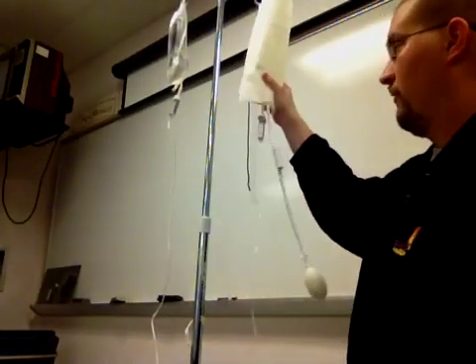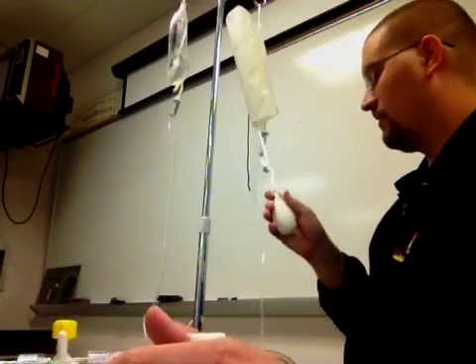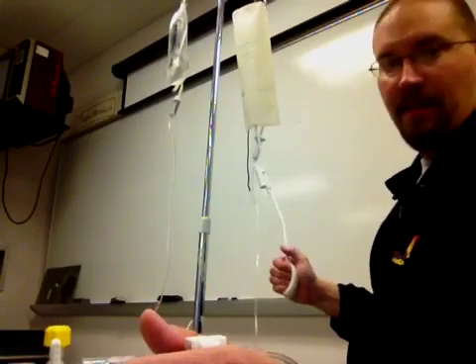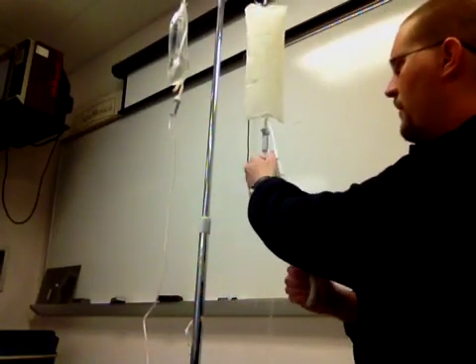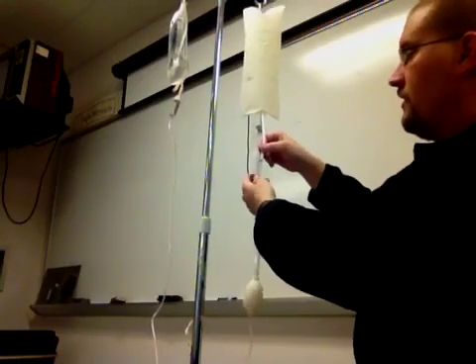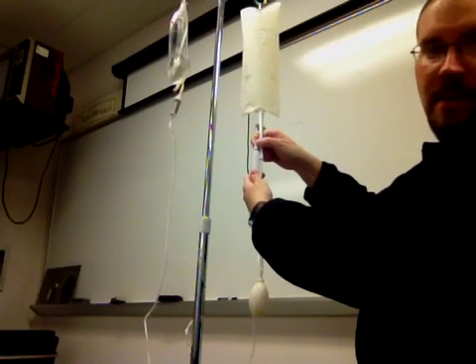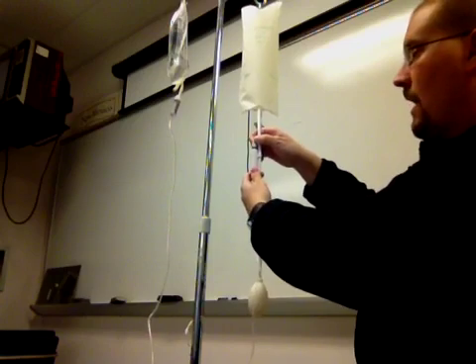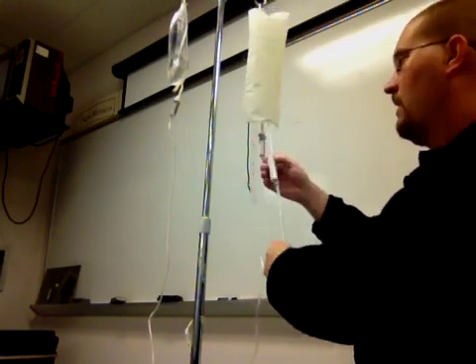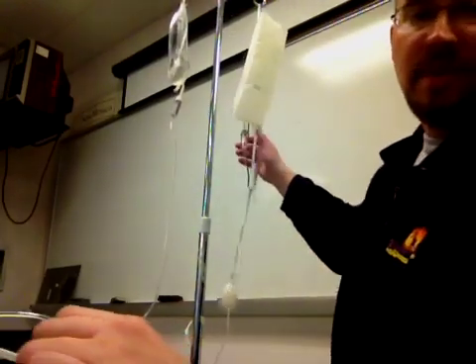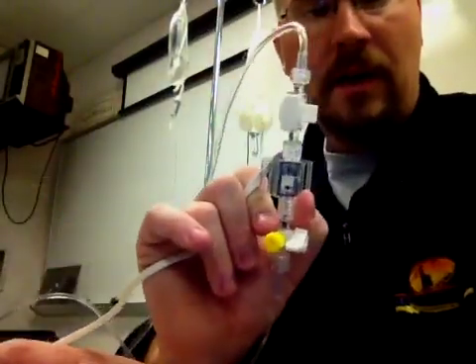Now, when we set up for hemodynamic monitoring, we need to have a pressurized system, and generally we do that through the agency of some sort of pressure bag. You can see this pressure bag. You go ahead and inflate that pressure bag. Most of them will have some sort of a manometer on there. As I put pressure in there, this little thing will pop up and eventually it'll get into a green zone, about 300 millimeters of mercury. Any higher and it'll say caution red. But most of these devices are designed to be pressurized at about 300 millimeters of mercury. At 300 millimeters of mercury, there's a little valve that opens up in here that allows fluid, something like three milliliters an hour, to flow ever so slightly and slowly through this line.